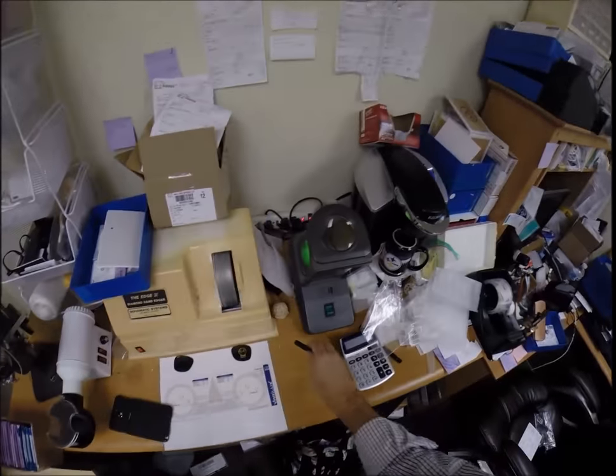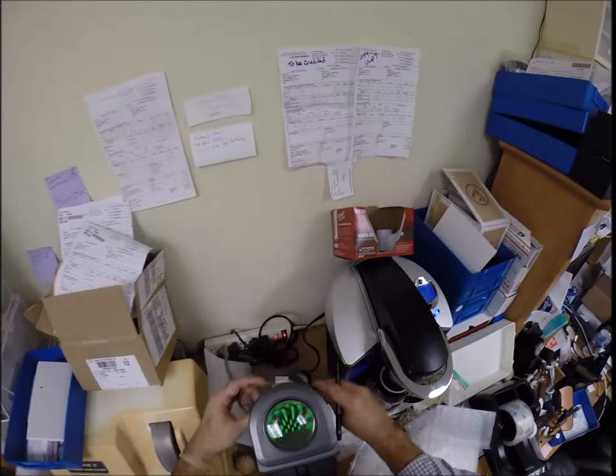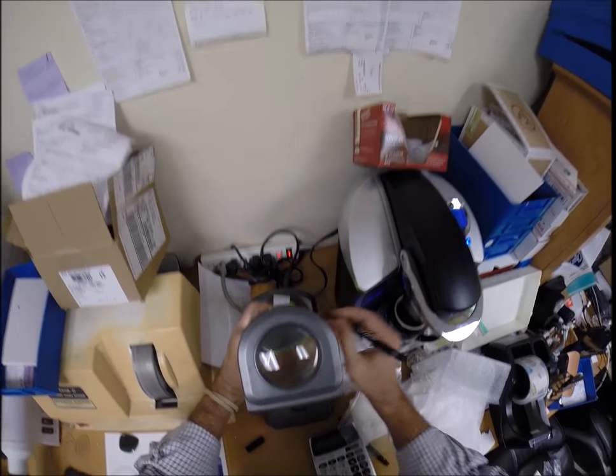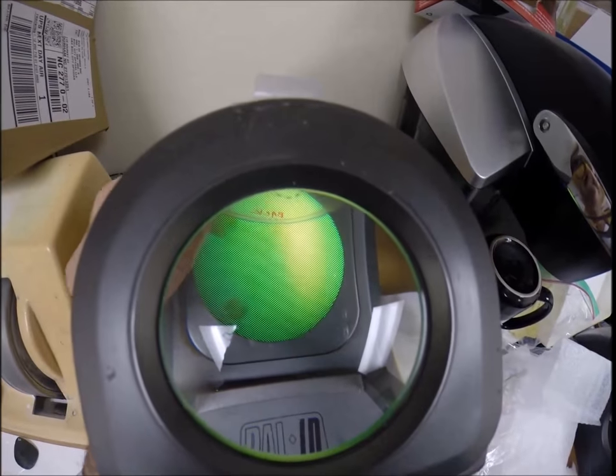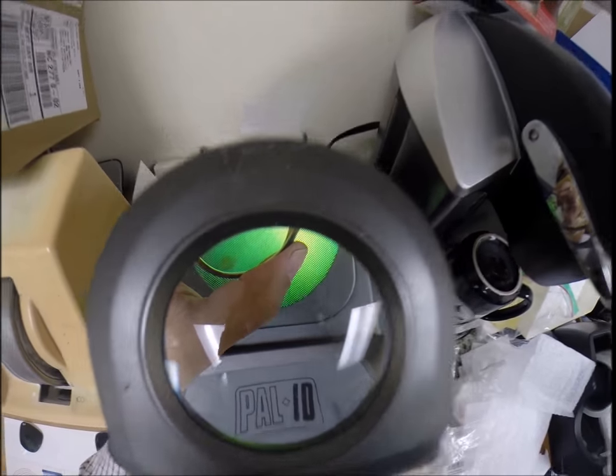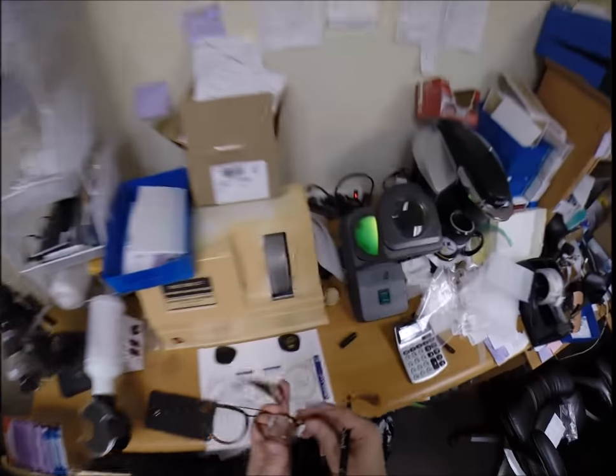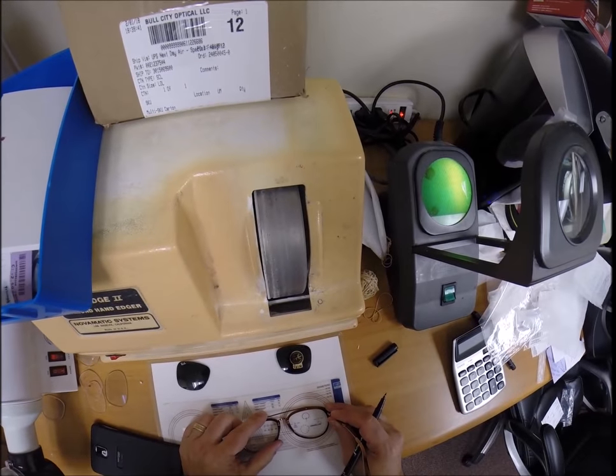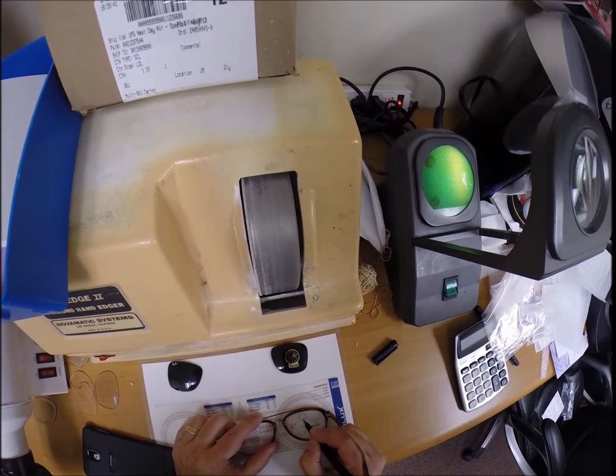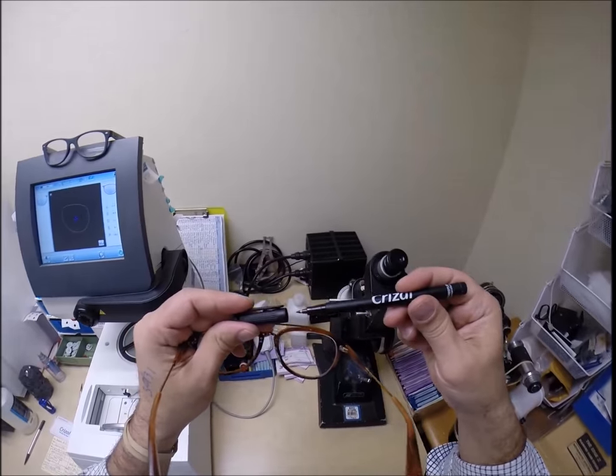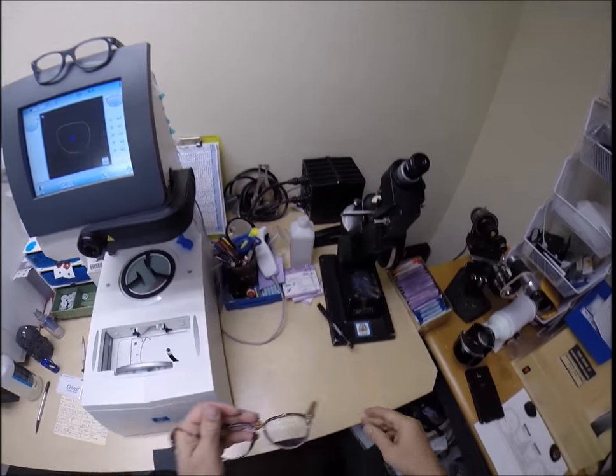Here's a good teaching moment. The dots came off. I have to put them back on there. You guys getting really weird special effects from looking at those dots in there? I've got the two dots on the laser marks. Flip that over. Put a dot right there. If you guys missed any of that, let me recap. You're not getting away without that bad joke.